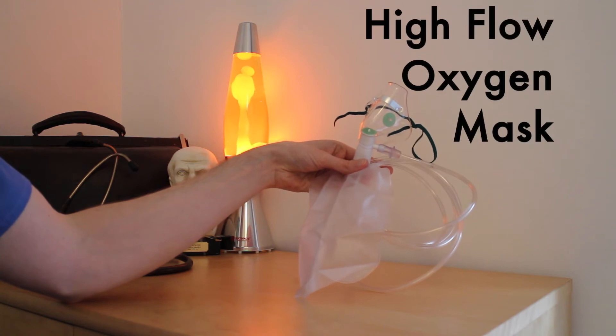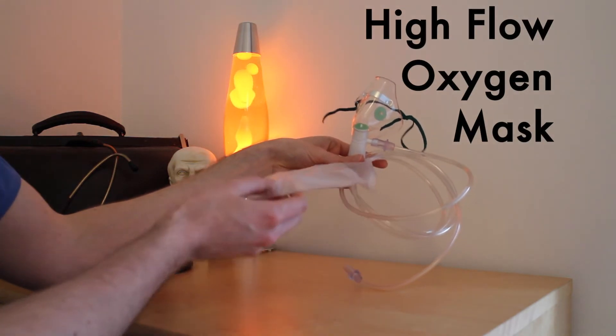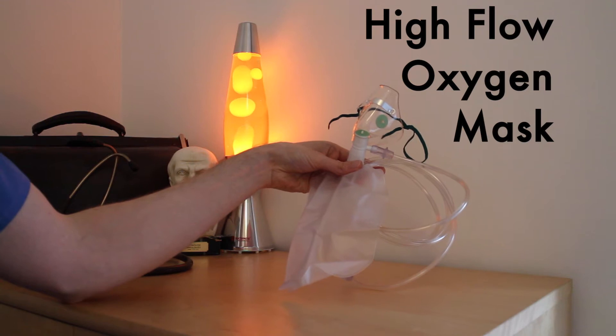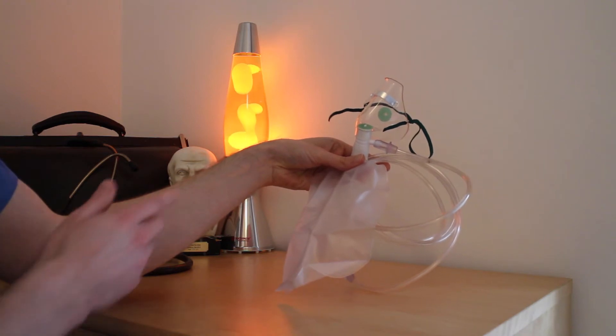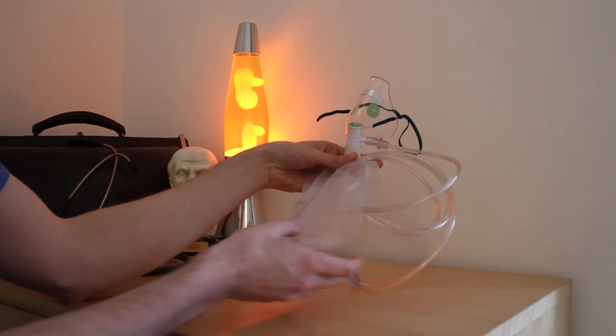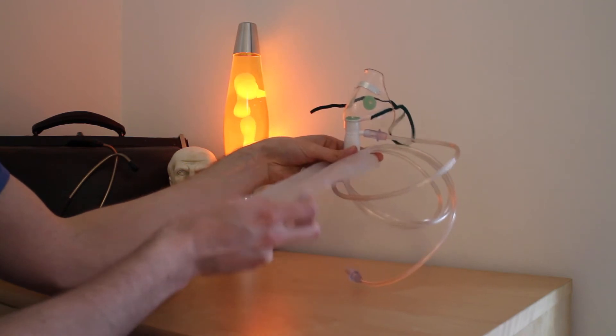This is a high flow oxygen mask with a reservoir. It is used to deliver oxygen to a patient who may be hypoxic. It comprises a mask and some tubing with a bag reservoir as well.